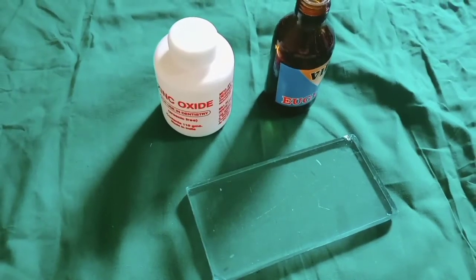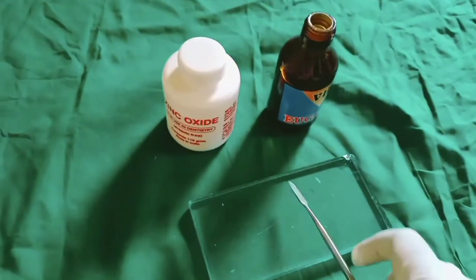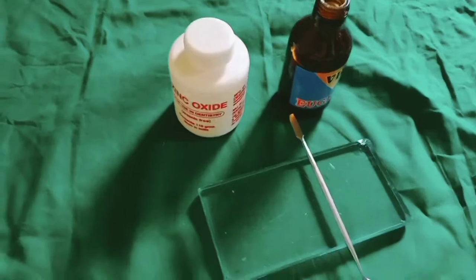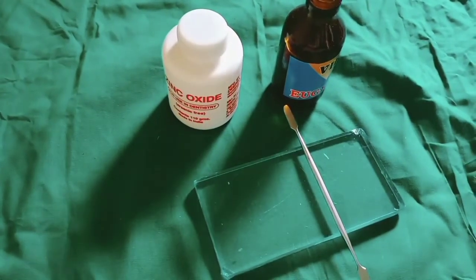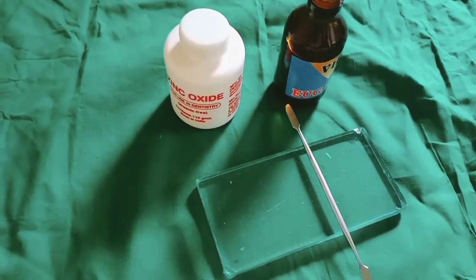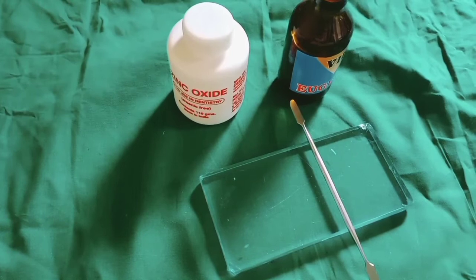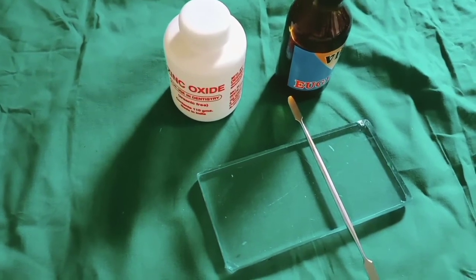Hi everyone, this is Dr. Shivlila here. Today I am going to talk about zinc oxide eugenol. Zinc oxide eugenol cement — the specification of zinc oxide eugenol is 30.